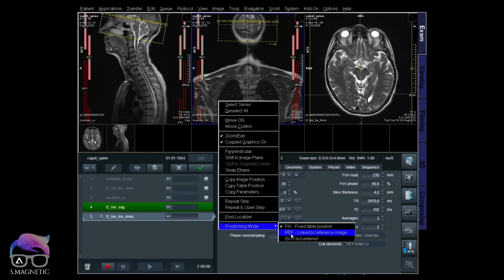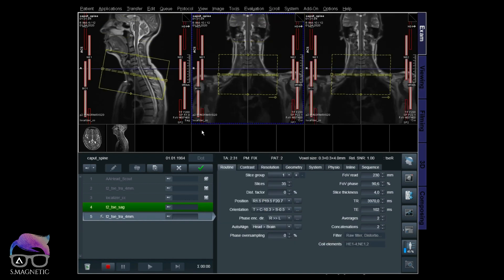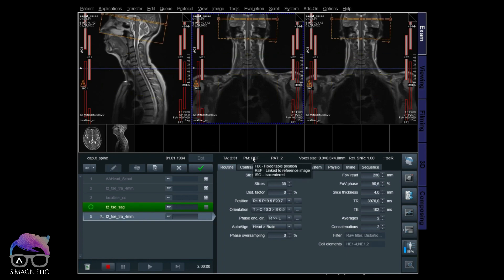If I use the reference mode, that means this sequence will now follow the isocenter to the cervical spine. So the reference mode is not wrong, but if you pull down a head sequence while having another isocenter position active, it will follow the new isocenter. My field of view is positioned at the head, but the isocenter is now at the neck. The orange box means you're scanning way out of isocenter - way out of range - so you will get very bad images.